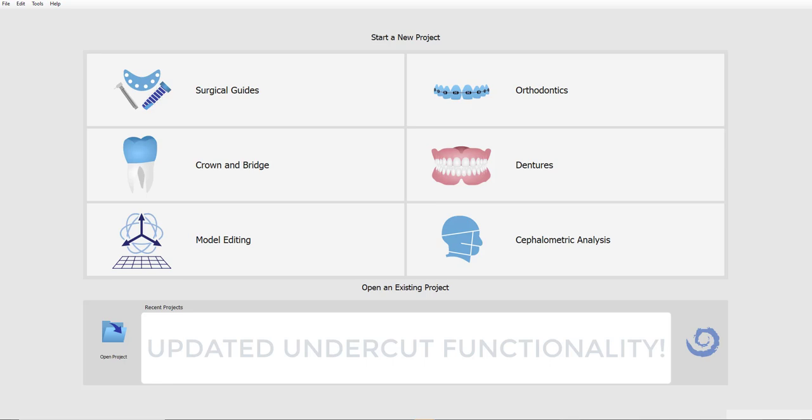So we have received feedback from our fantastic BlueSkyPlan user base. Based on that feedback, we have updated the software and come out with an improved, updated release. I'm going to explain what changes were made in a previous release, what changes were made in this release, and how everything works.